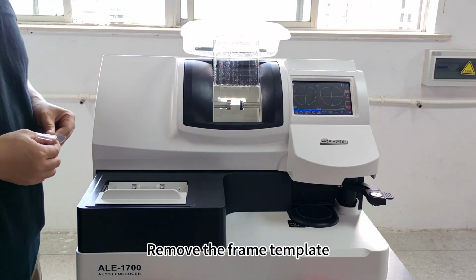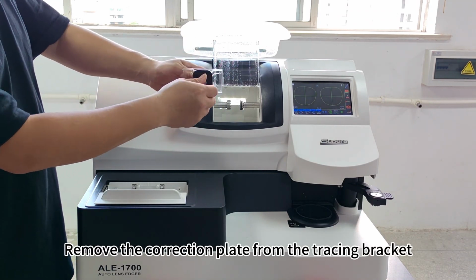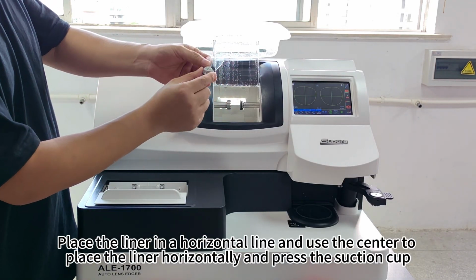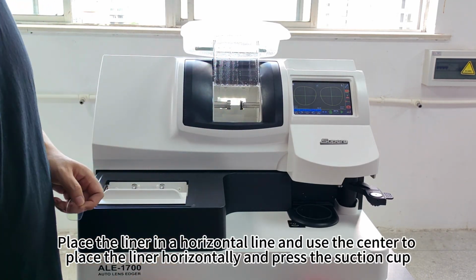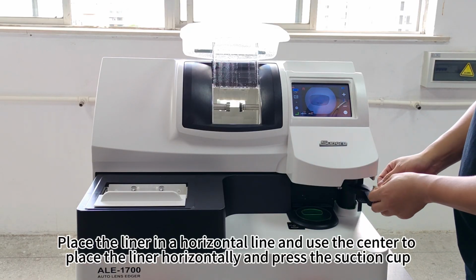Frame template processing. Remove the frame template. Remove the correction plate from the tracing bracket. Place the liner in a horizontal line and use the center tool. Place the liner horizontally and press the suction cup.